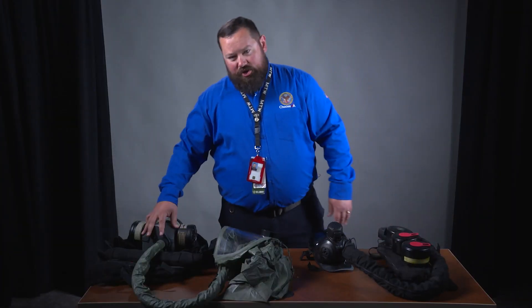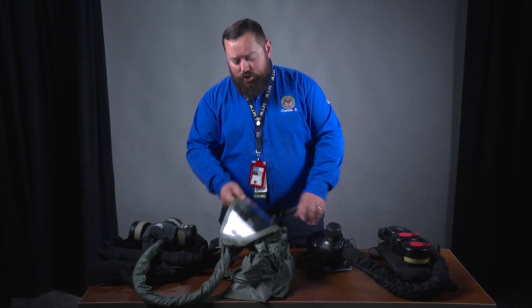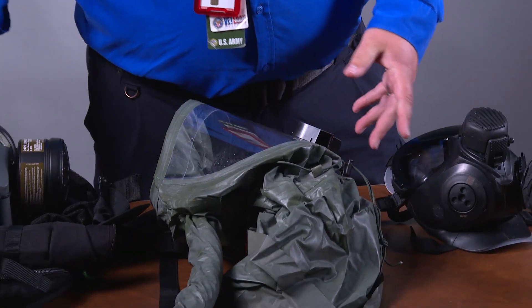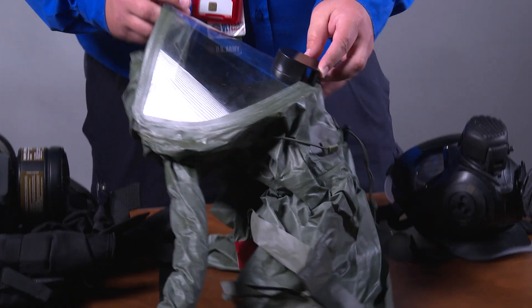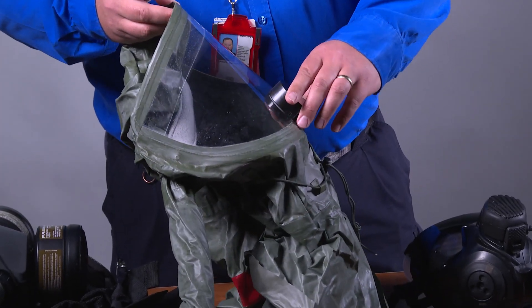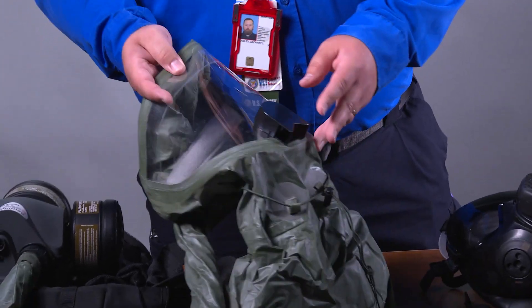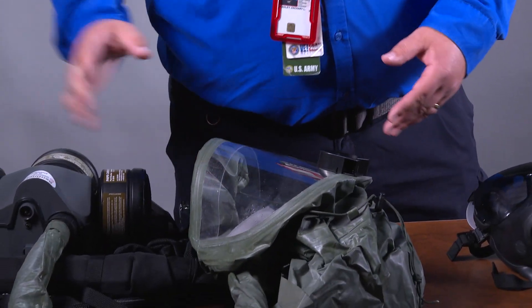The Dover Sentinel XL uses a loose-fitting, hood-type mask with the same hose configuration as any other mask. It also has an exhalation valve, which serves as the voice transmitter for this mask. This is very difficult to hear in a noisy environment, especially with the blower unit running.